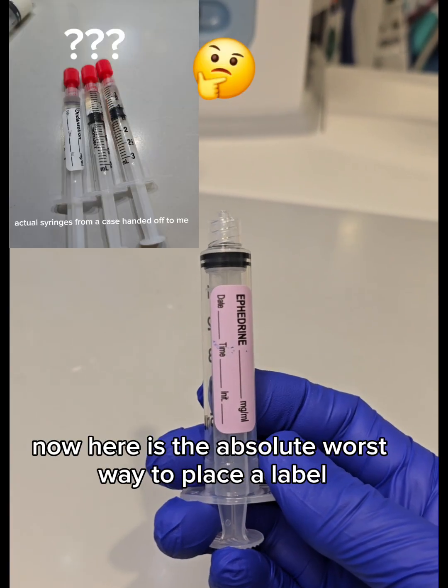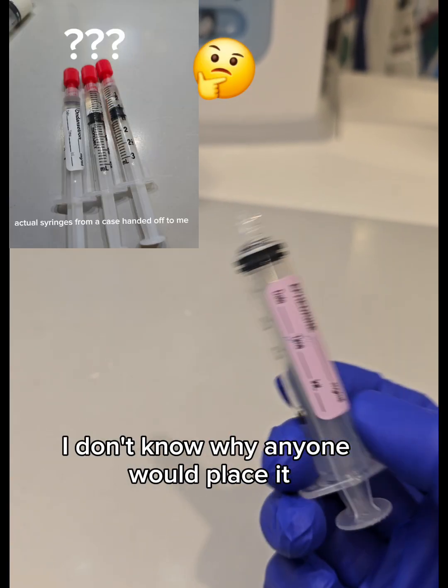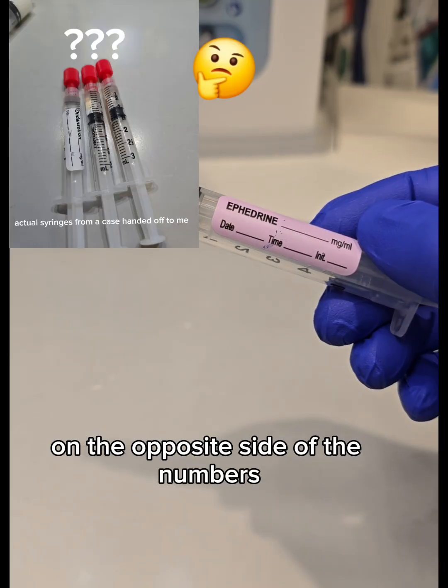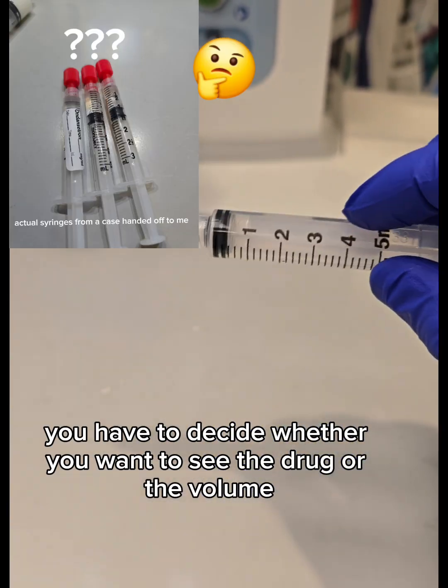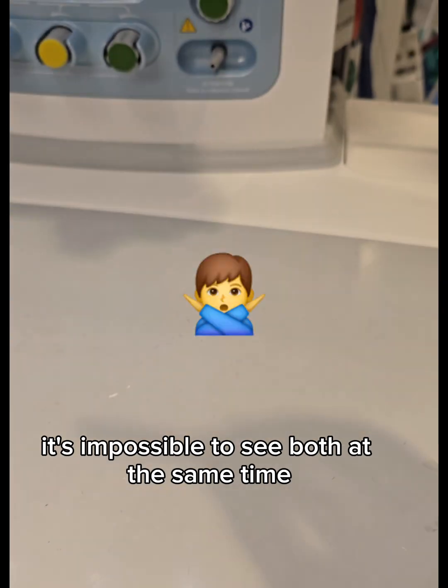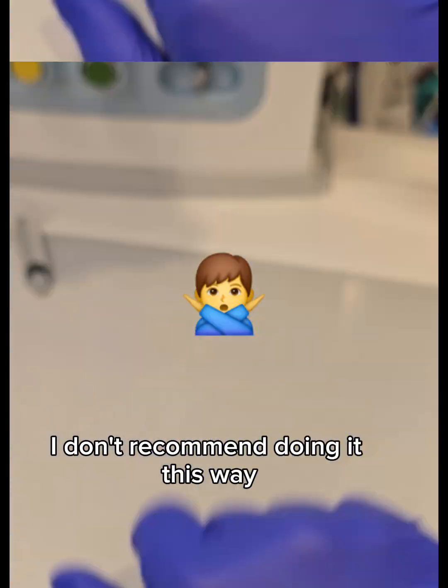Now here's the absolute worst way to place a label. I don't know why anyone would place it on the opposite side of the numbers, because in this situation, you have to decide whether you want to see the drug or the volume. It's impossible to see both at the same time. I don't recommend doing it this way.